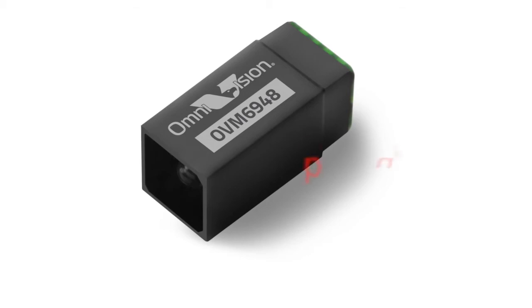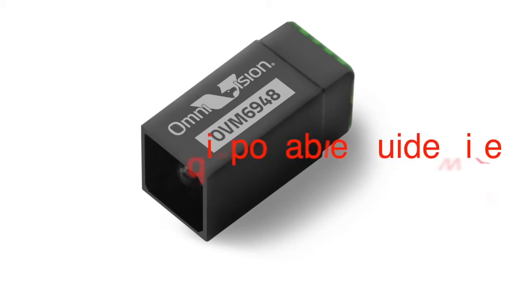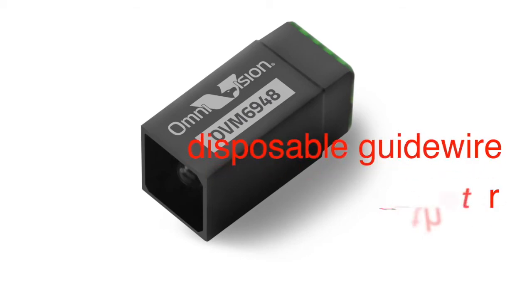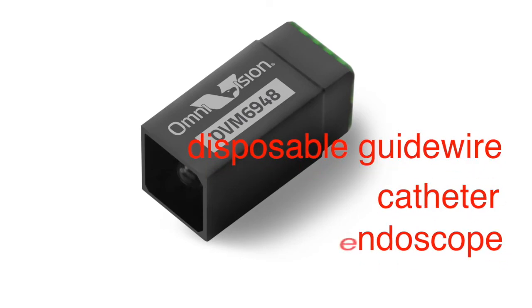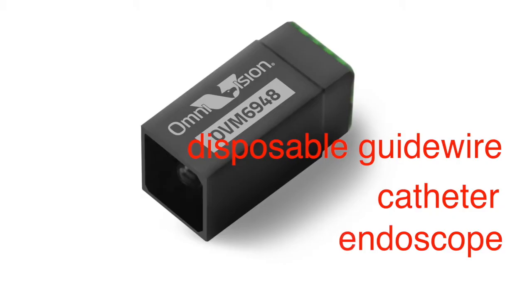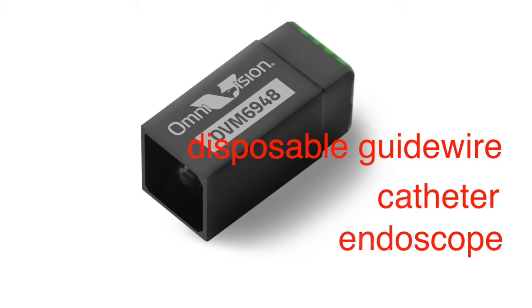This complete module can be integrated into a disposable guide wire, catheter, or endoscope with a diameter as small as 1 mm.